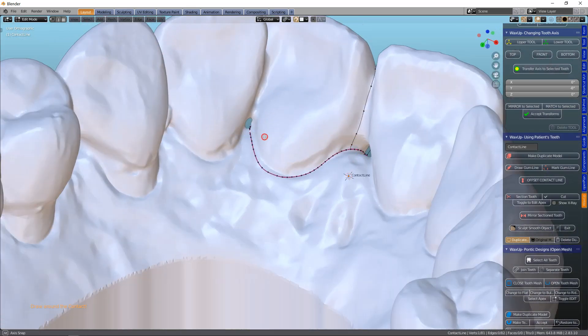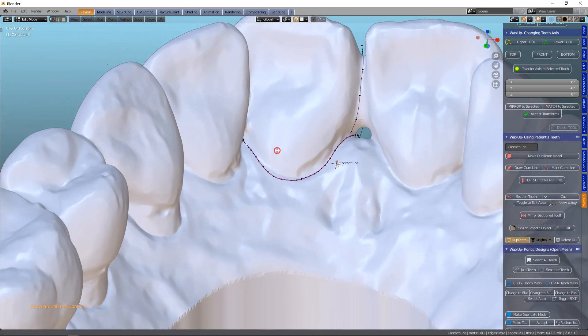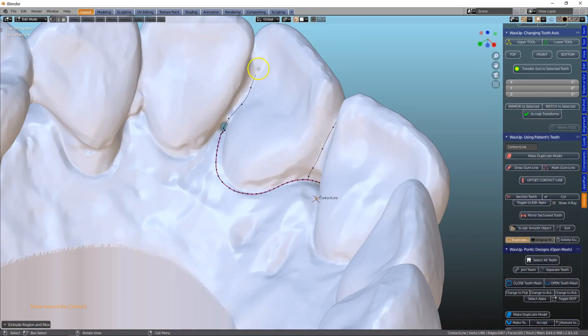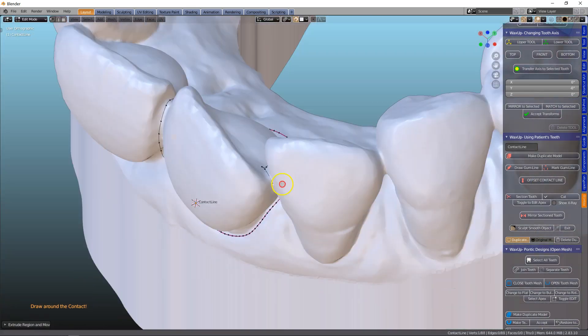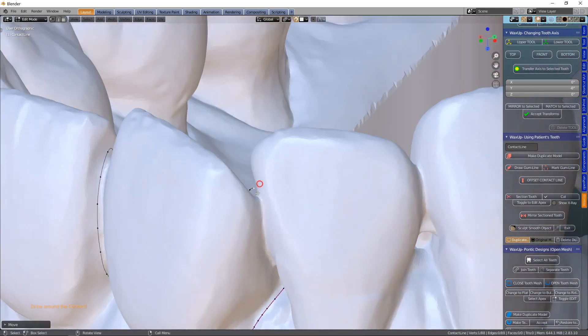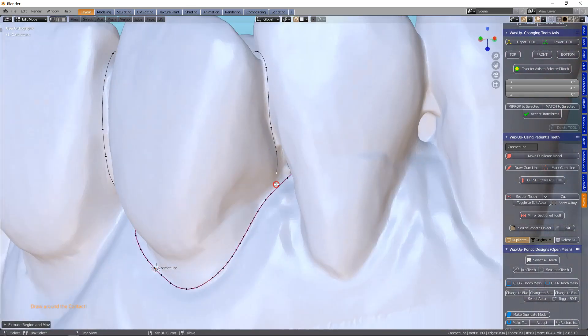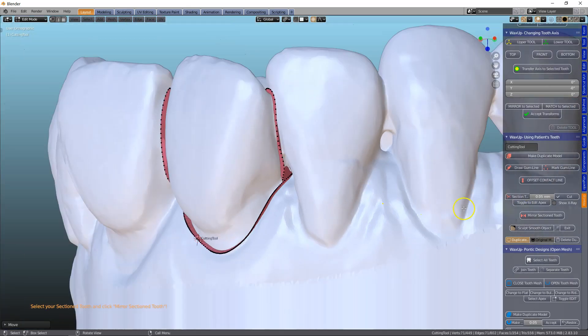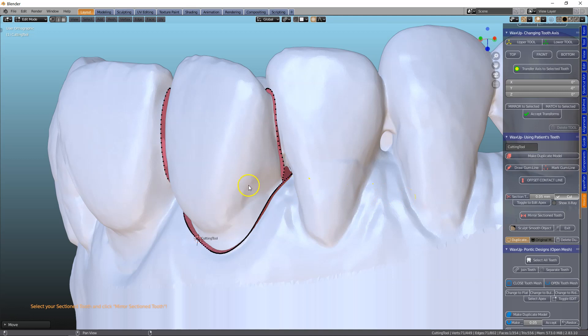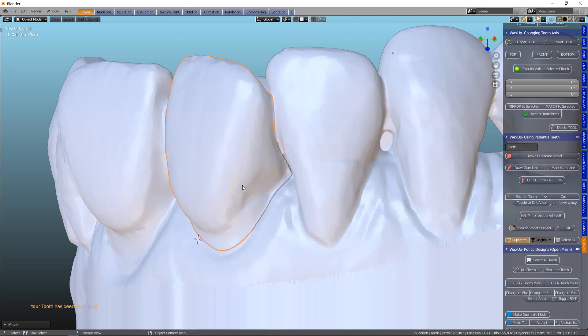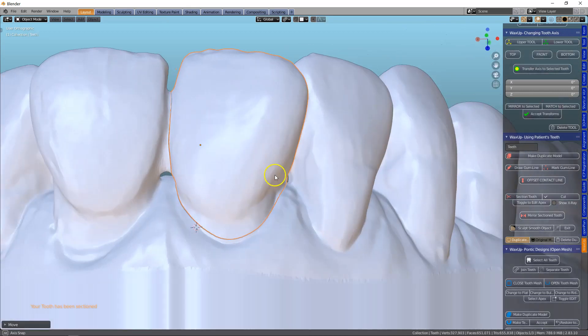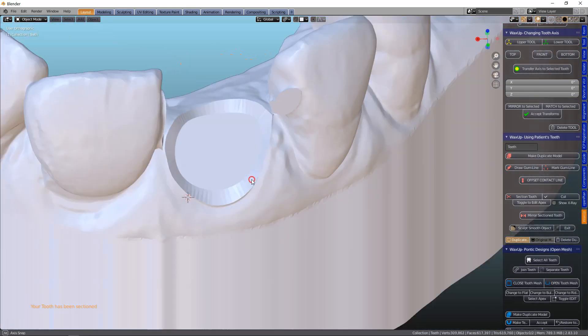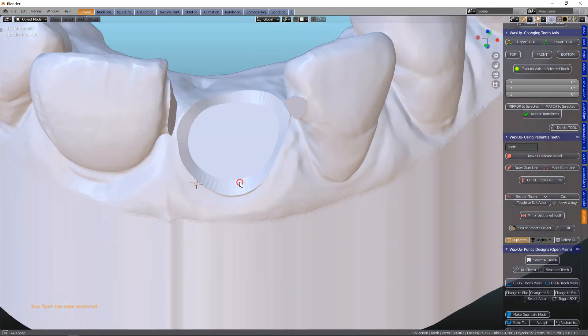Let's do the same on the other side. Section the tooth and cut it off. Then I'm left with the tooth has been trimmed away and we've got a ditched model underneath it.